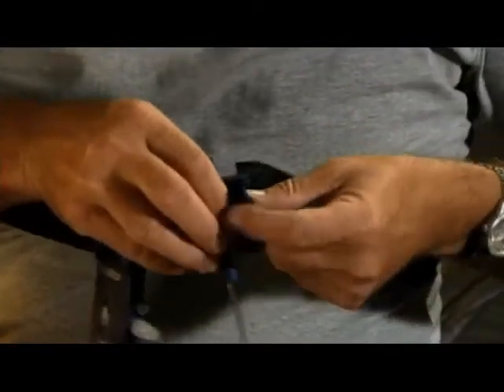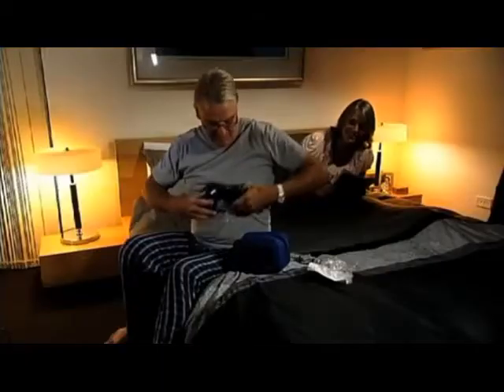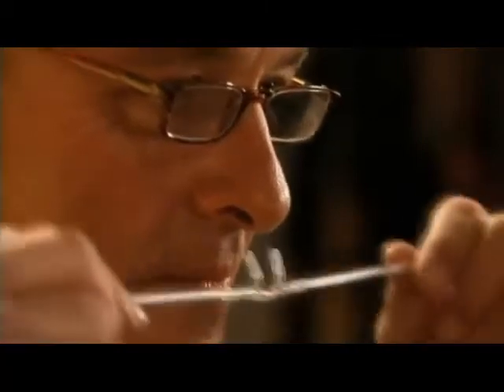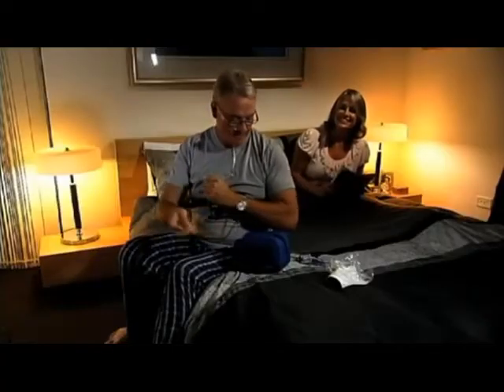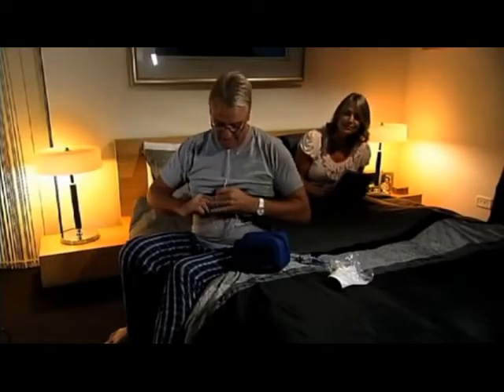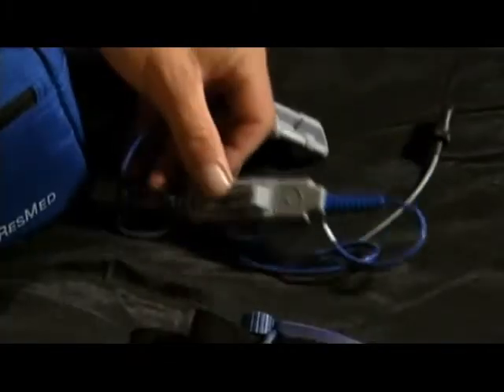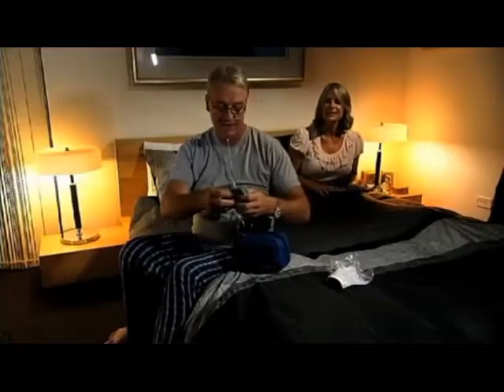Before you go to bed for a normal night's sleep, you need to assemble and attach the other components. Locate the nasal cannula, which measures airflow. With the two prongs facing downwards, loop the tubing over each ear and tighten the toggle under the chin — make it snug but not so tight that it's uncomfortable. Then insert the end of the nasal cannula into the recorder by turning it clockwise. Your health care provider may have already done this for you.